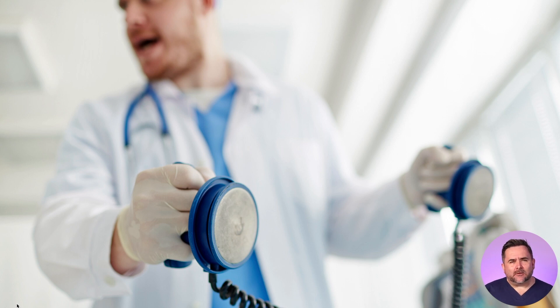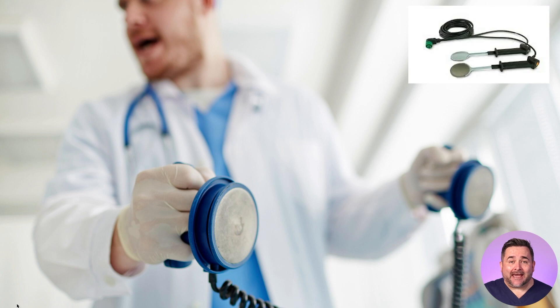Other options available, but rarely used these days unless it's in movies and TV shows, are the paddles. Some device manufacturers do not even supply paddles anymore, and they can be ordered as an additional accessory if required. Another option, when a patient's chest is open, is to make use of internal paddles that can be connected to your defibrillator.